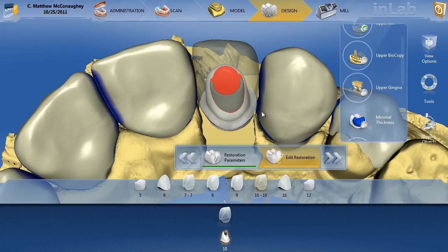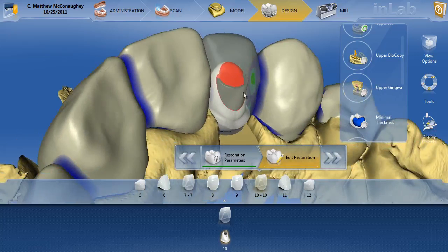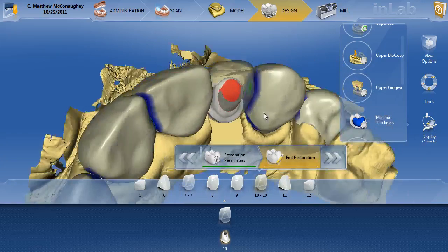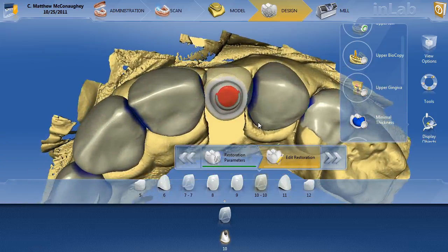I'm going to redesign this abutment a little bit nicer and correct a couple of issues. But no matter what I do, this titanium base is probably going to be perforating the backside of this abutment. So what you're actually going to have to do is take a burr to this — when you put the abutment and titanium base together, grind off this, smooth it up, fill it with composite, and re-scan it to make a new crown over the top. Not terribly difficult. We still have a nice custom abutment, just an extra step.